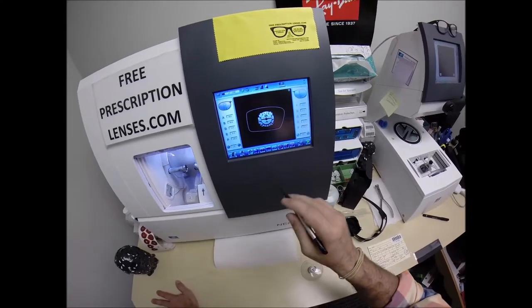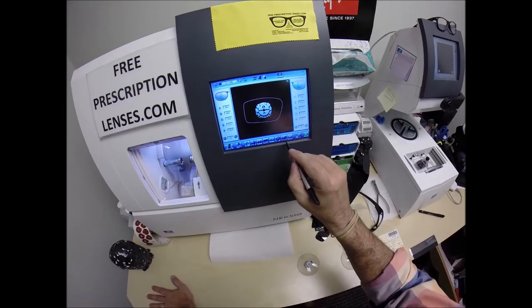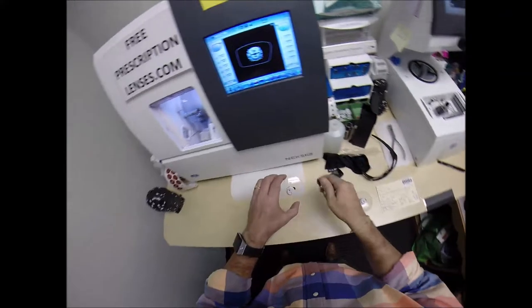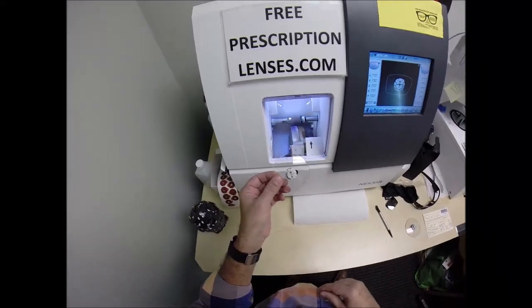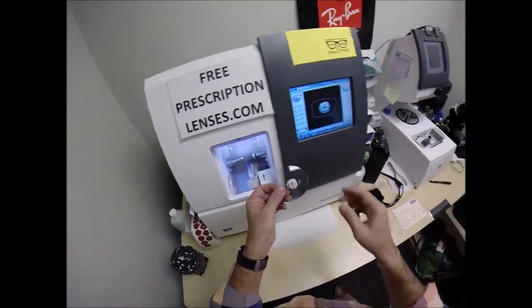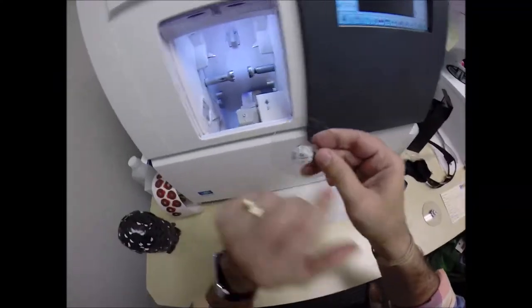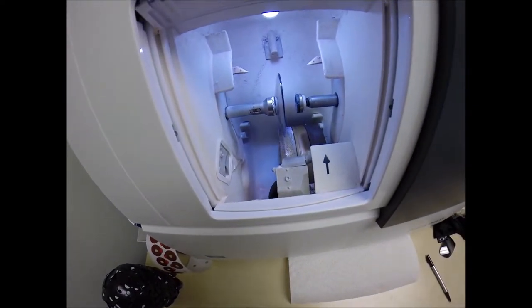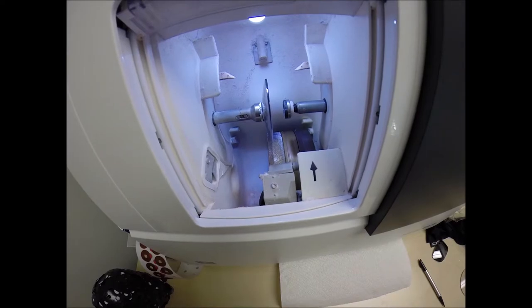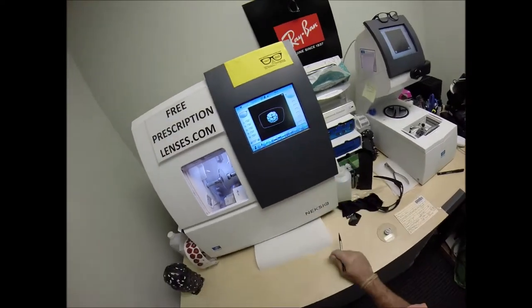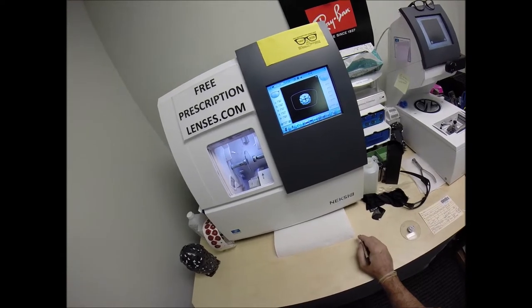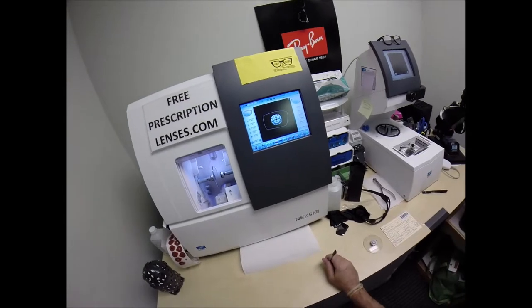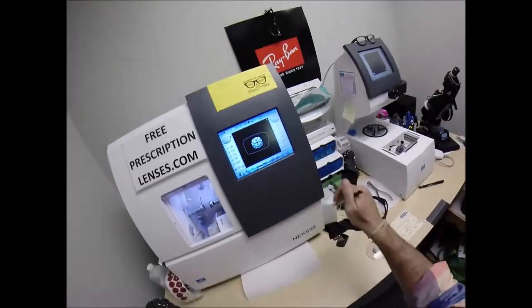I'm not going to polish the edge of the lens because it's not going to be seen. I'm not going to put a safety bevel on the front convex surface of the lens. I'm only going to put a safety bevel on the rear concave surface of the lens. And that concludes your vocabulary lesson of the day. Press that on there firmly. Now the magnet's going to do its job a second time. They say to be an expert on YouTube, you have to have 10,000 hours of experience. I've got probably 20,000 hours.